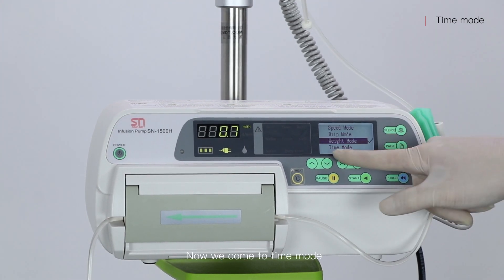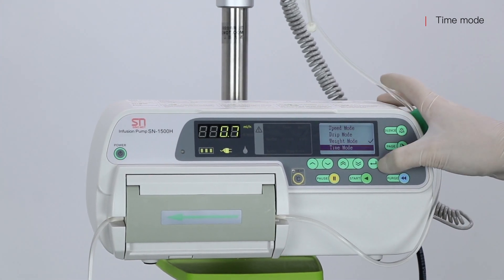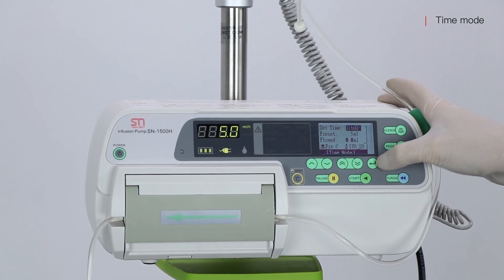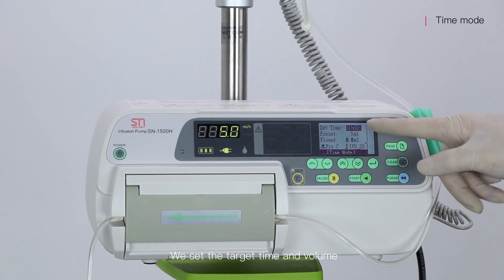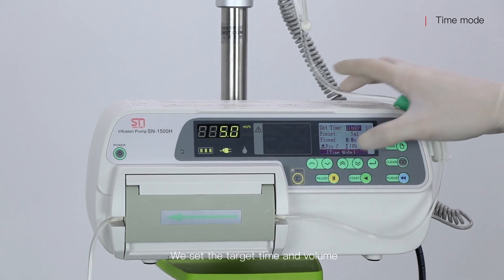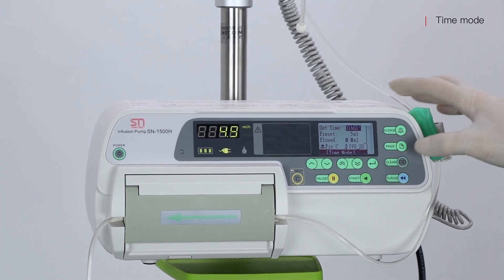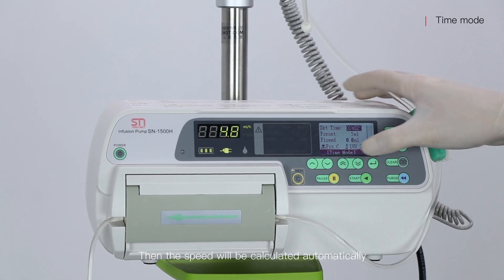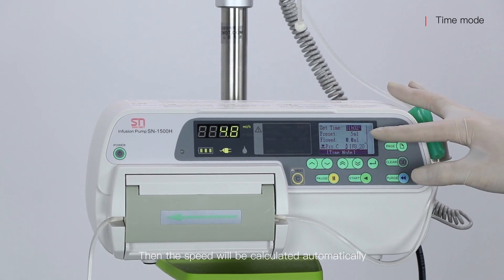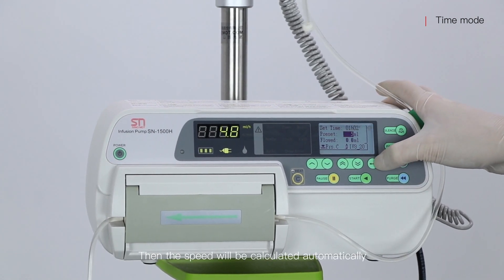Now we come to Time Mode. We set the target time and volume, then the speed will be calculated automatically.